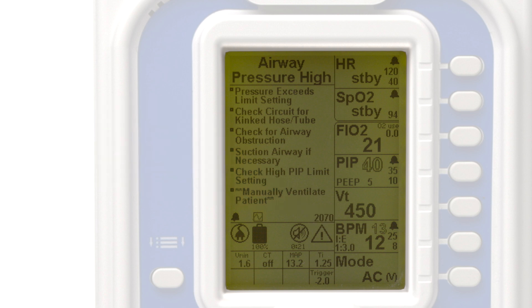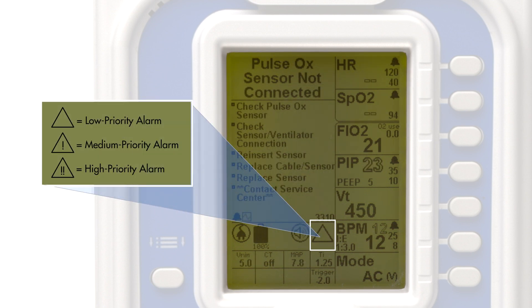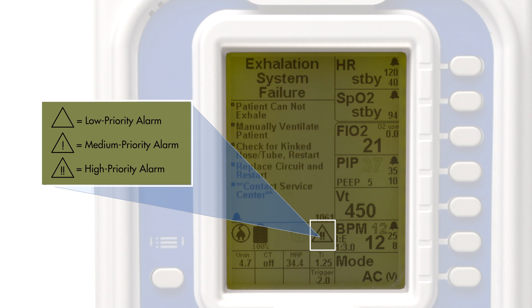In the main area of the icon tray, an alarm will trigger the Attention Warning icon. This icon accompanies the service code in identifying the severity of the alarm. A blank triangle represents a low priority alarm, a triangle with a single exclamation point represents a medium priority alarm, and a triangle with two exclamation points represents a high priority alarm.